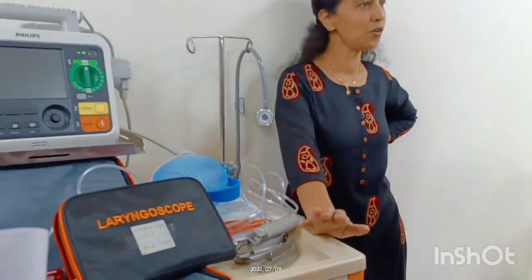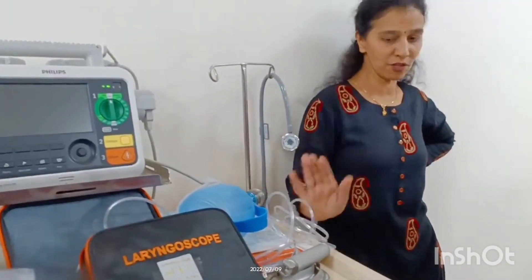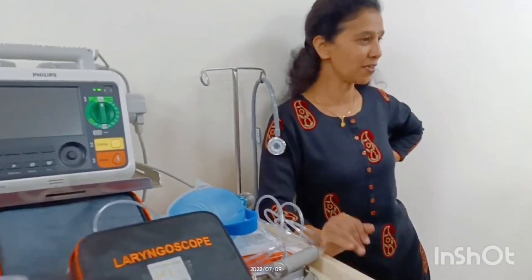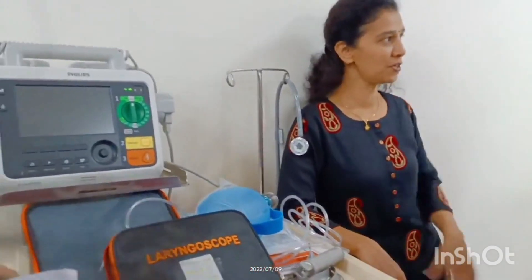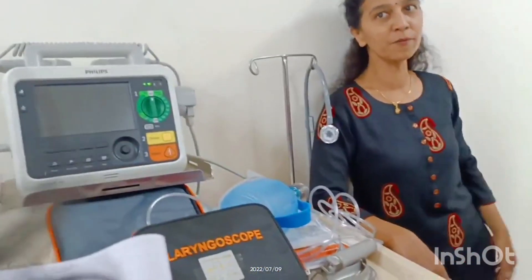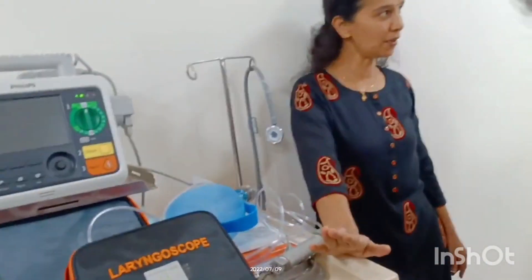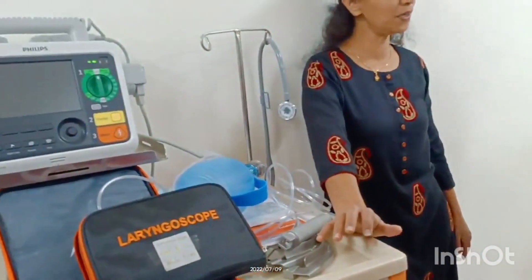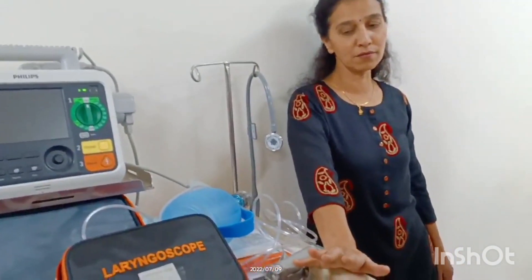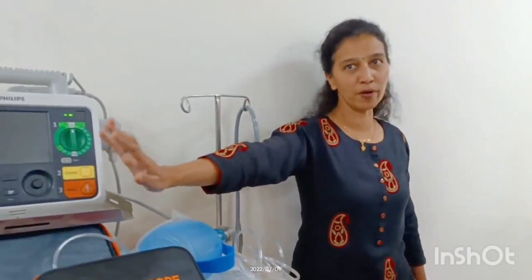The crash cart is opened when a patient has a cardiorespiratory arrest, or when you have intubated patients. It is called a crash cart because it is opened when the patient has crashed suddenly. There are strict protocols to open it because all high-alert drugs are stored inside. These medications cannot be kept in the open regular medication area.